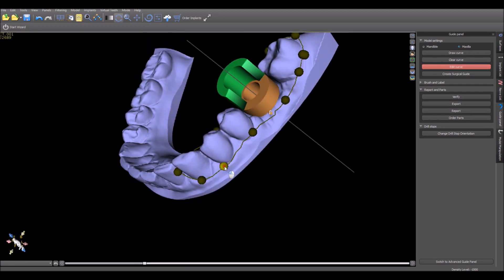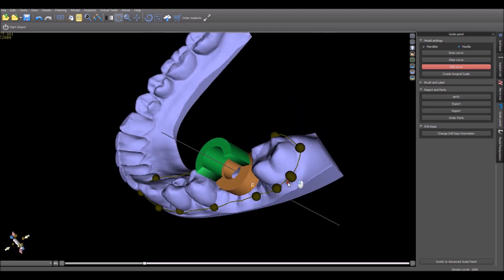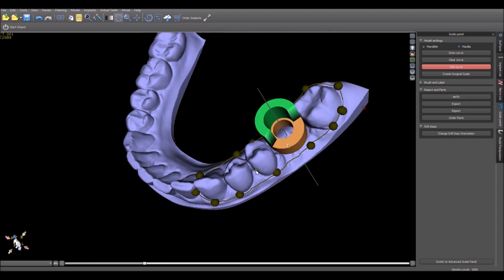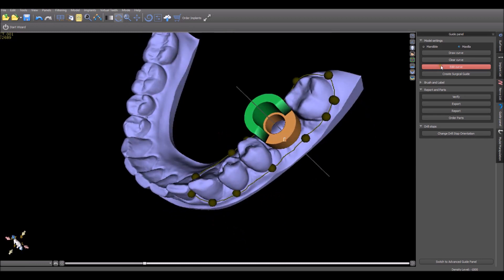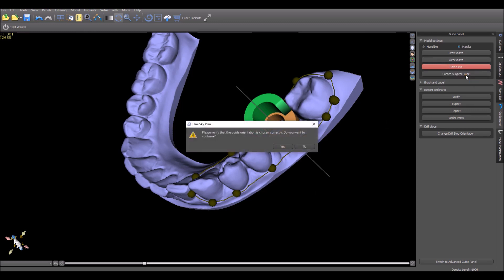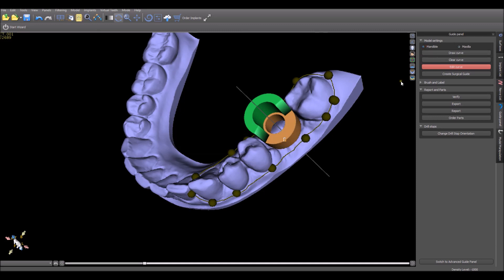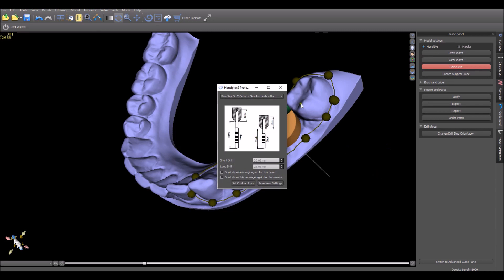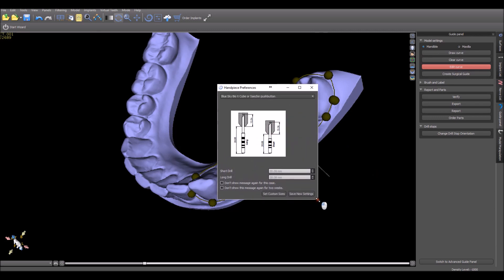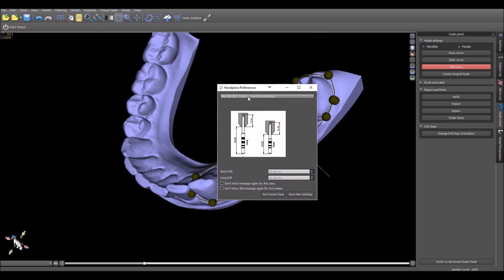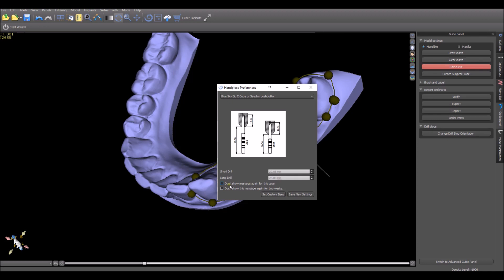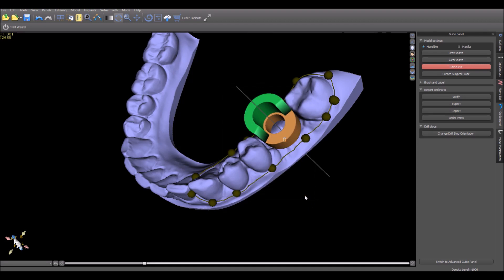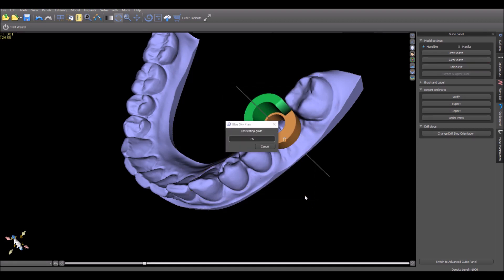Here we're going to fine-tune anything that we have. Again, we want to make sure it's smooth and continuous. The software is going to automatically remove the undercuts in Normal mode. And we make sure we're happy with the placement. If we don't like it and want to start again, hit Clear Curve. If we do like it, we hit Create Surgical Guide. Here the software caught a problem for us. You want to make sure we're using the correct jaw type. Now Create Surgical Guide. The screen that comes up allows us to verify and to select which handpiece we're using. Different handpieces allow different amounts of the drill to go into the handpiece and affect the depth. We could pick the relevant handpiece. Again, we recommend the Blue Sky Bio X-Cube. And then we click Save New Settings.